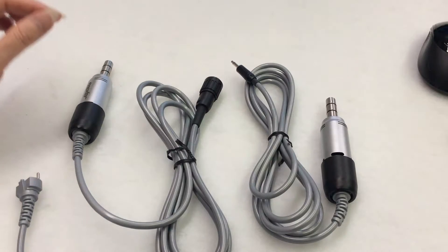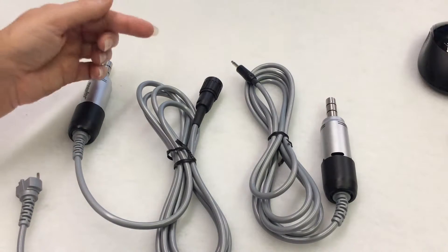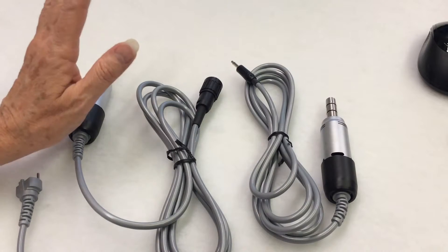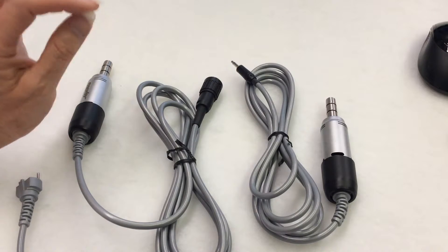The micromotor wiring in the cord may have become damaged with use, or maybe the cord got pulled out of the connector. But don't worry — you may not have to send it in for repair. Depending on what micromotor you have, you may be able to replace the cord in the comfort of your clinic.